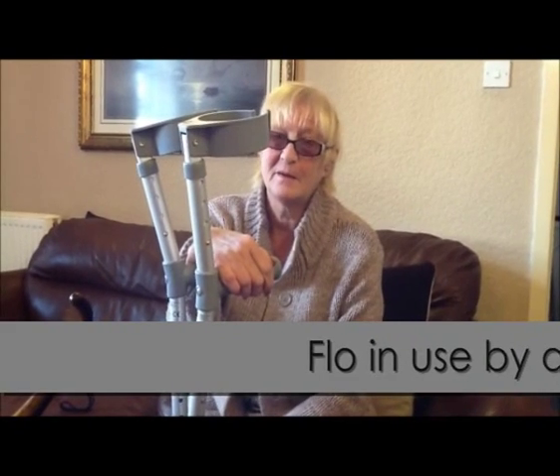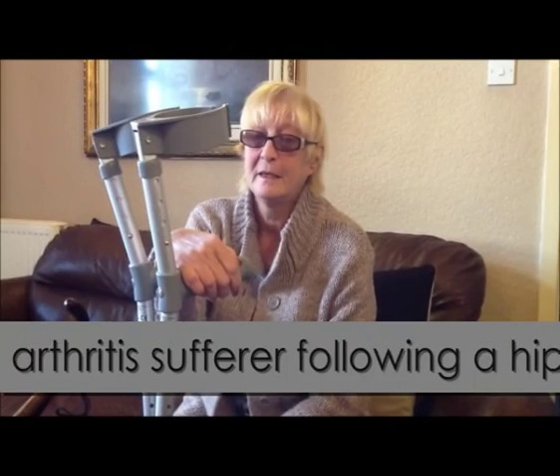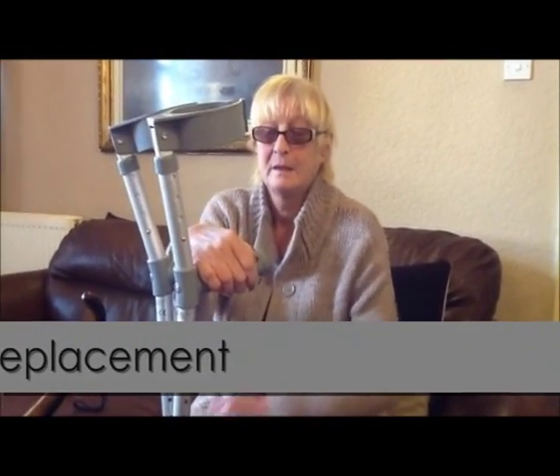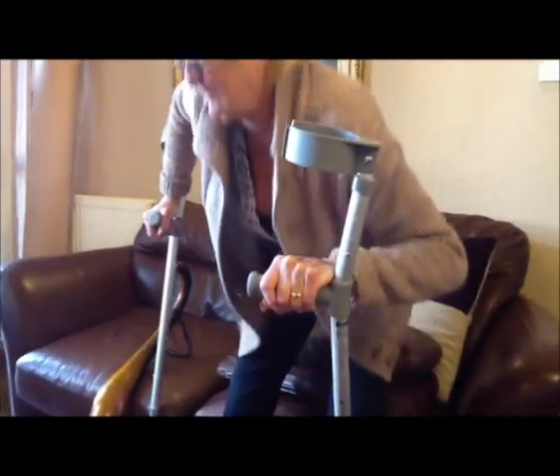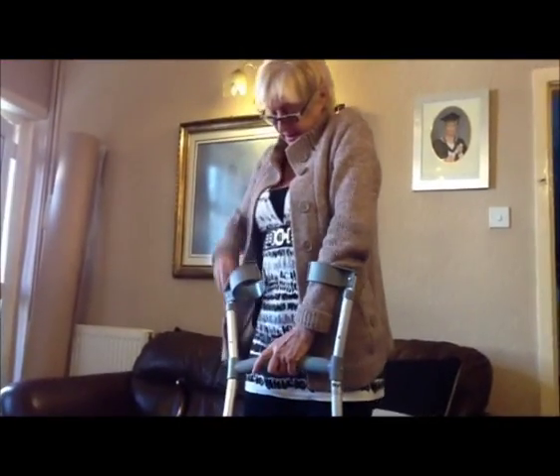I recently had a hip replacement about four weeks ago. I find it very difficult to get out of the chair. I have to use two crutches on a normal day. The only way I can actually get up is to push myself up on each crutch to enable me to get my hands inside and use them.